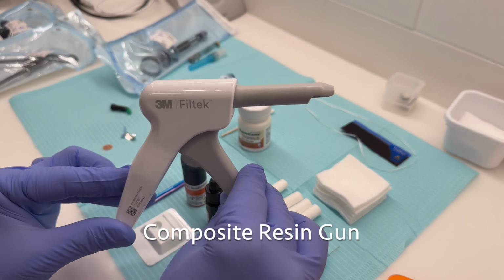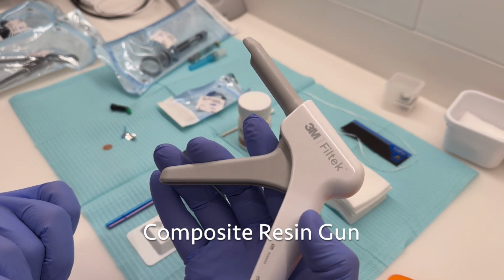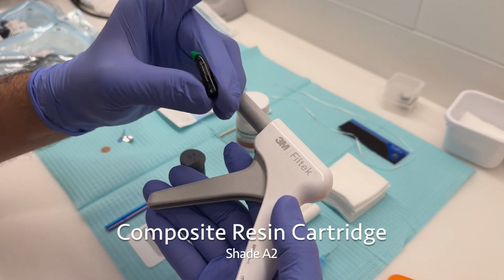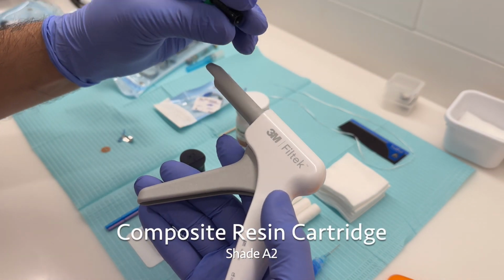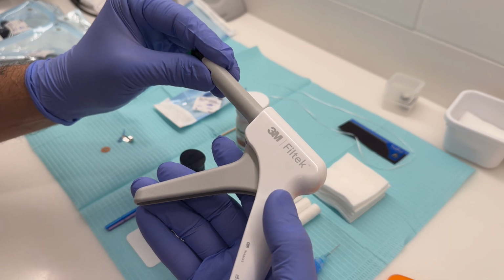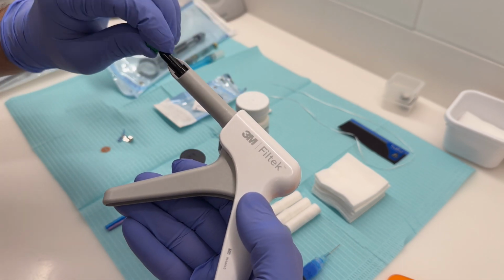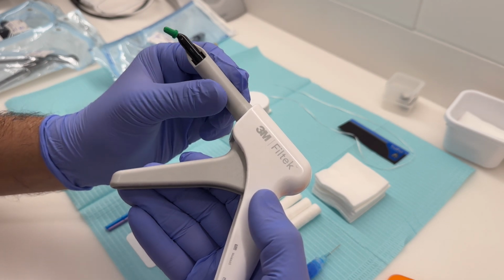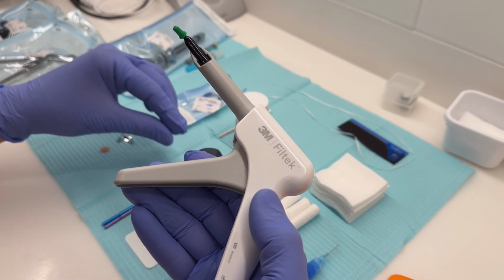This here is our composite resin gun. It's used in conjunction with our composite resin cartridge, which helps our dentist to safely place the composite resin in the cavity prep. It's always good to have a second composite resin cartridge handy just in case you accidentally run out during the procedure.